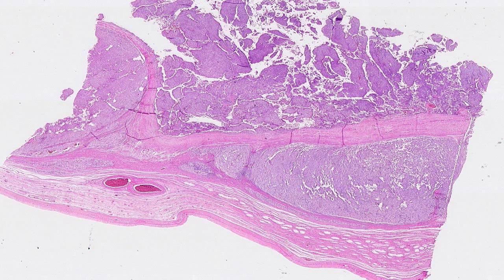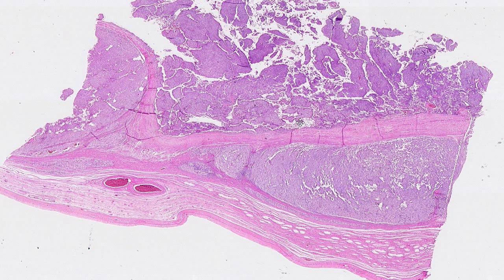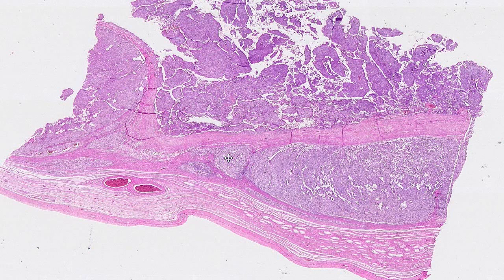Hi, my name is Mike Datto. I'm a pathologist from Duke University Medical Center, and this is a virtual slide from the Duke School of Medicine virtual slide box teaching set, and specifically this is described as a testicular tumor, or a testicular mass in a young male.